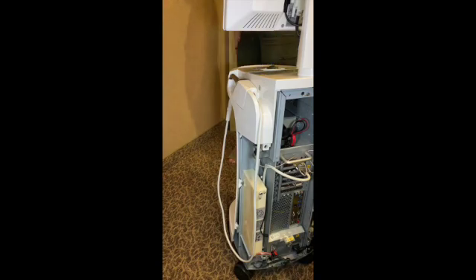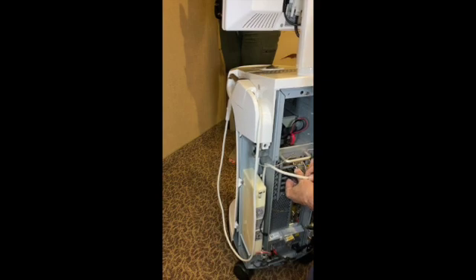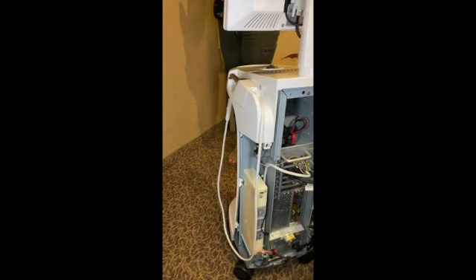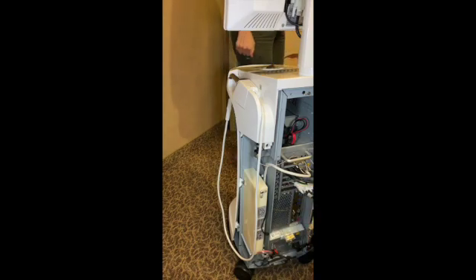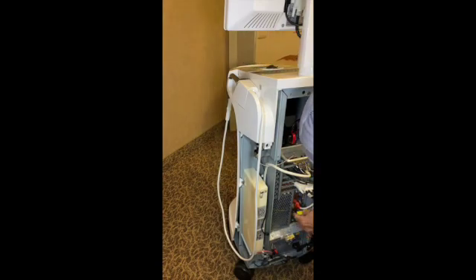The next thing you do is hook these up. As I said, these have all different connectors. This one with multiple connectors is going to go to this middle one. This other one here has four connectors — that's going to go to this one here. And then here's the other one — this one has only three connectors. Hook that up. Sometimes it's a good idea to number these. Then the next thing is the DVI connection — hook that in there and snug it up. After those are done, go down here and put all these back in. This one here is a network connection — put it in the network port. I like to number these so when the computer boots up it's not re-figuring out where the USBs are. Put that in, put that in, and all these things are hooked up.